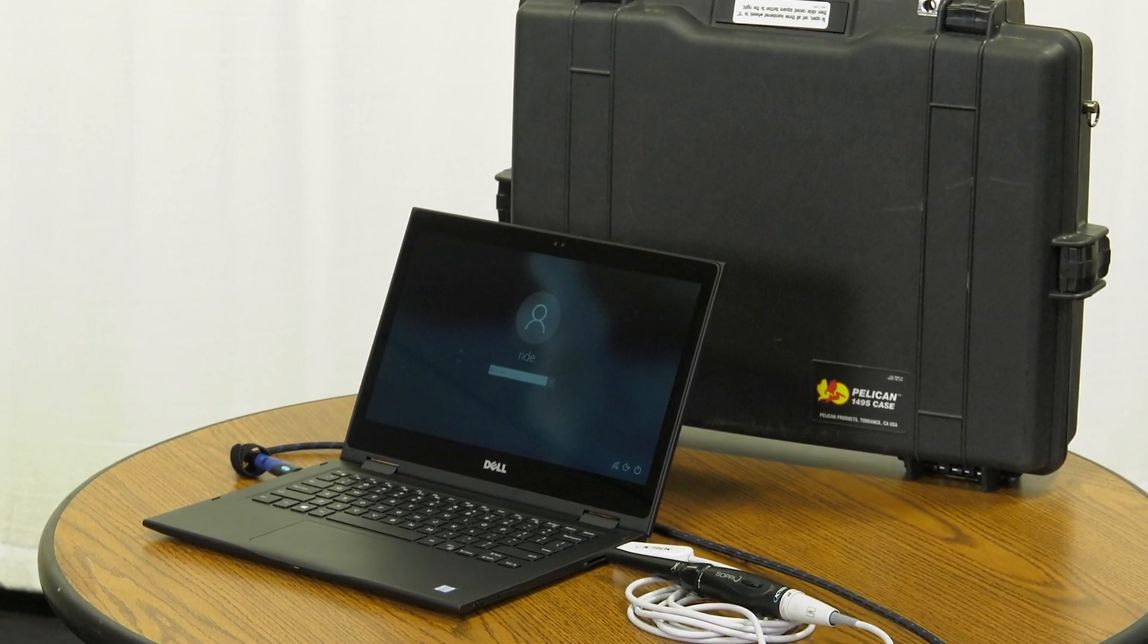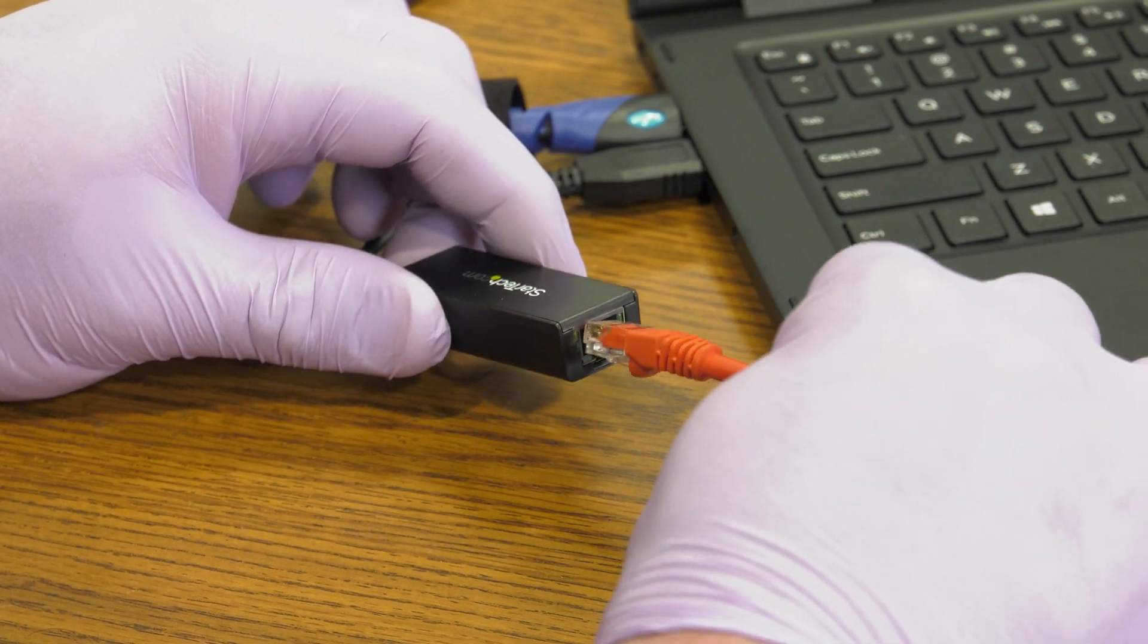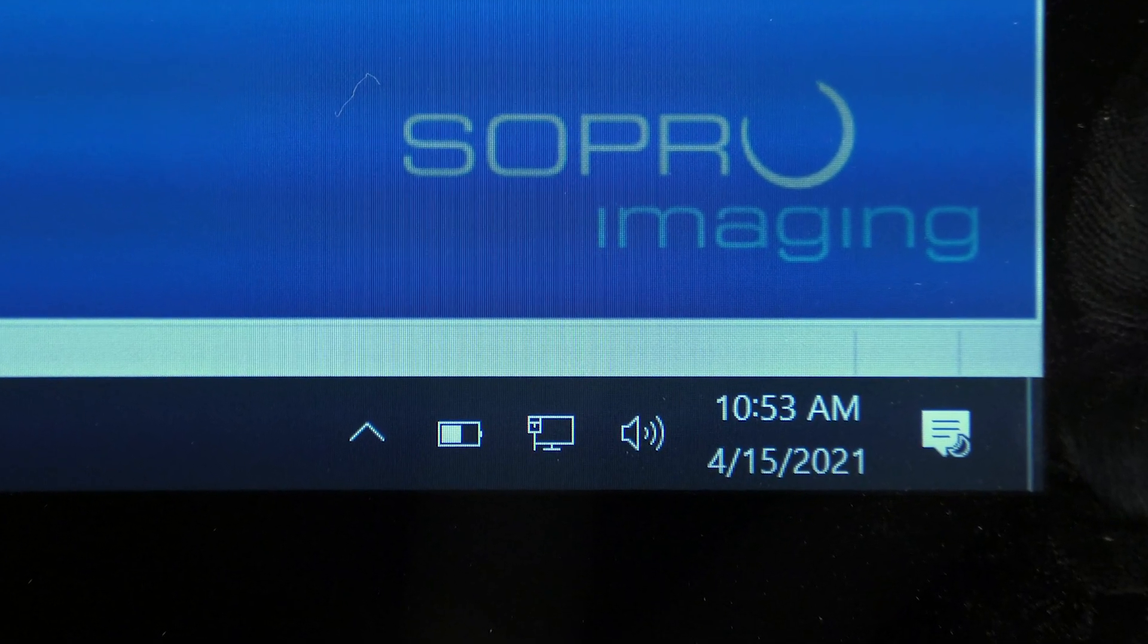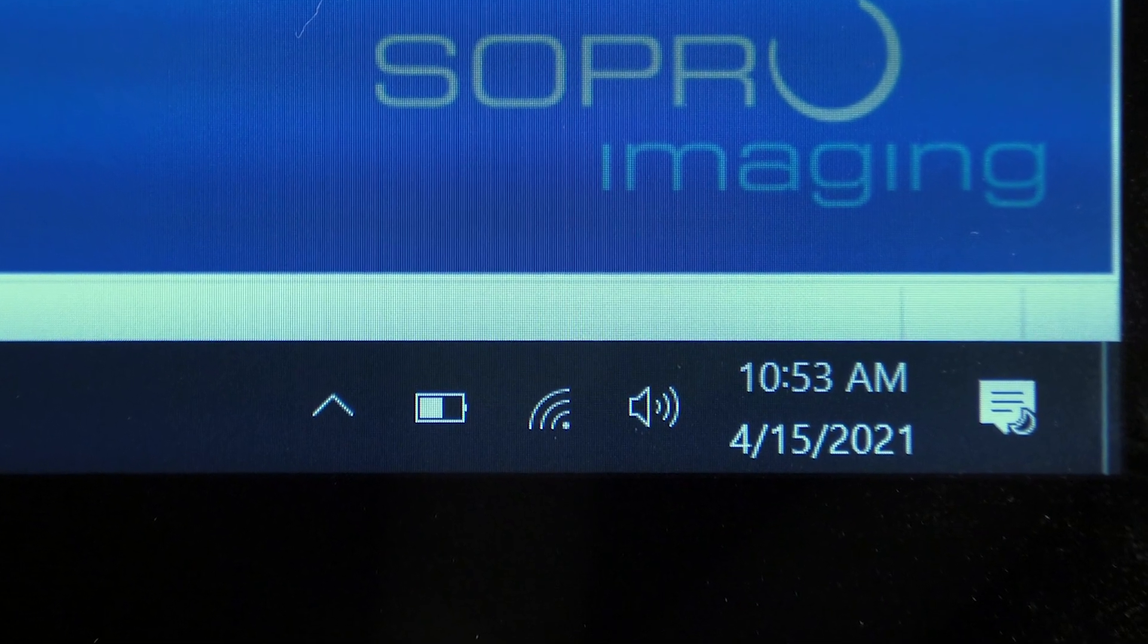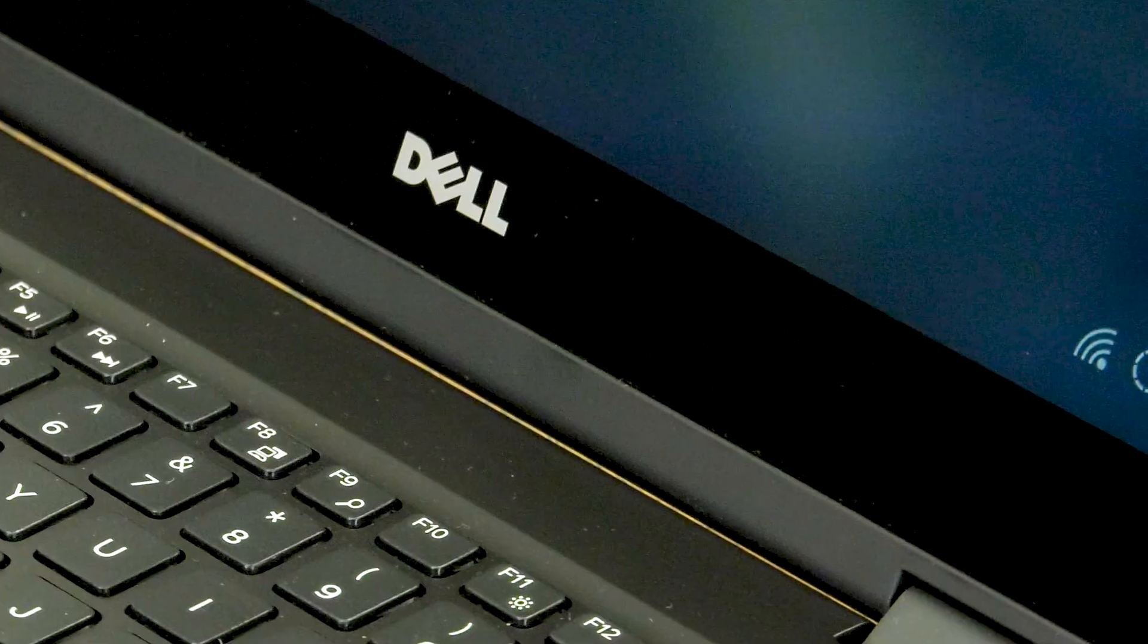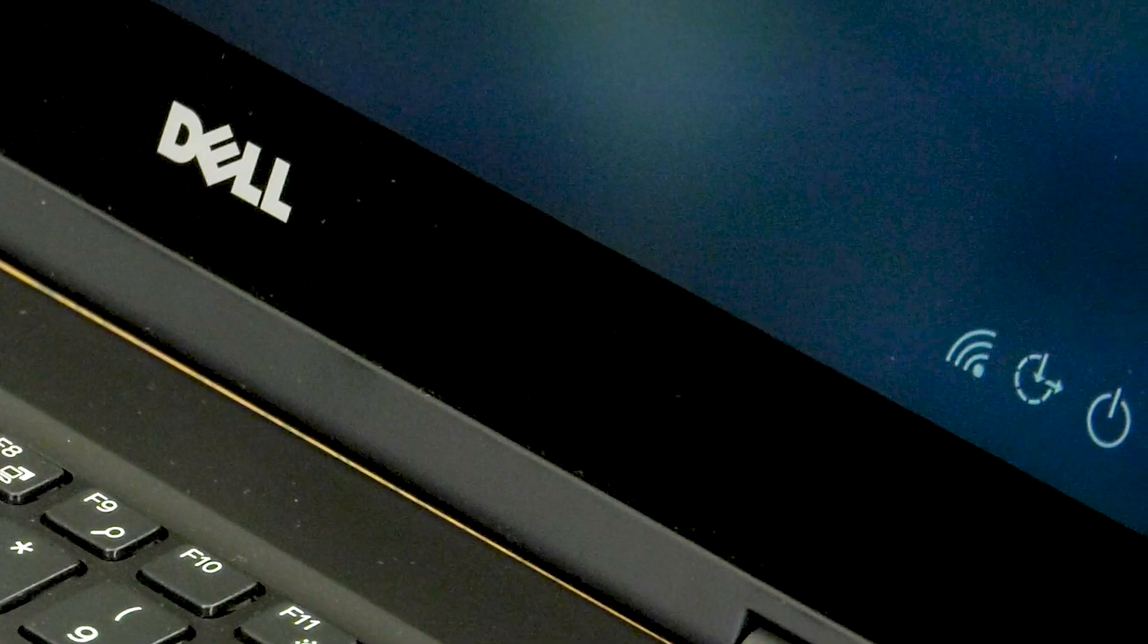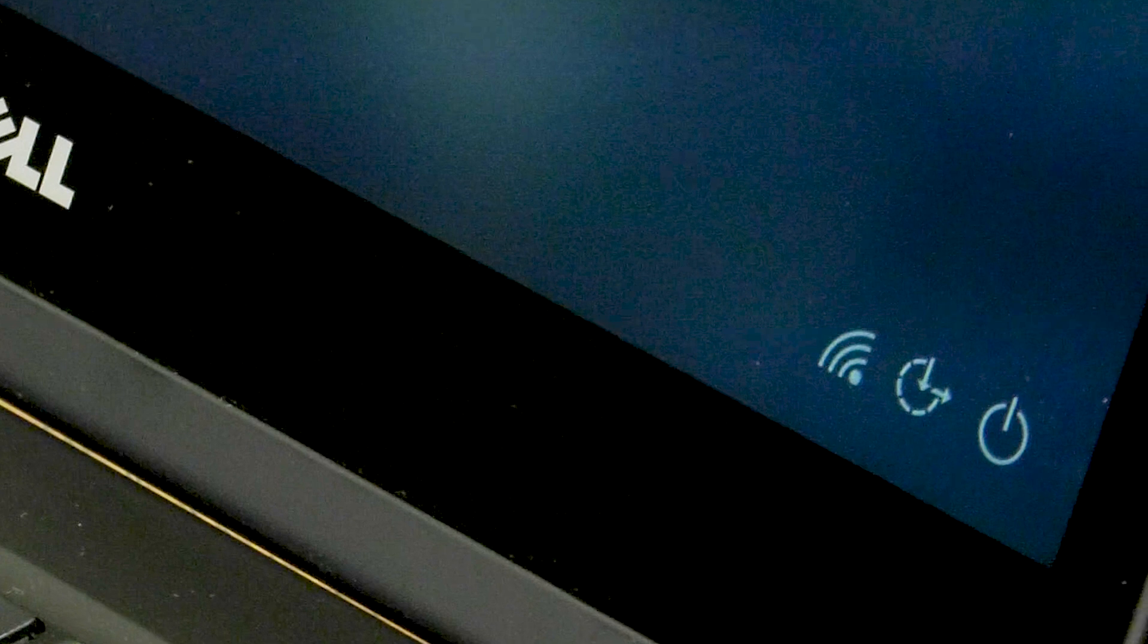The laptop can be connected by a direct Ethernet connection or wirelessly by Wi-Fi. If going wireless, ensure that it can connect to the local Wi-Fi network without issues. It is advised to have the laptop automatically connect to the site's network from power or sleep, if connecting to Wi-Fi.